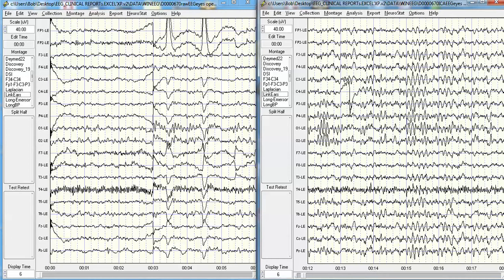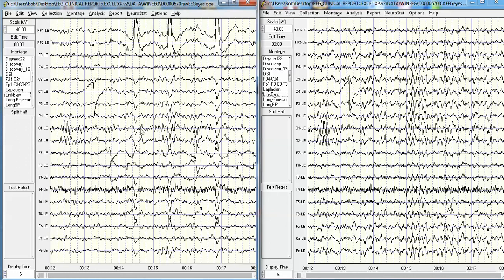You can see no eye movement in the reconstructed data. Here's that feature at 13 seconds that was present in the original data — it's not eye movement, so you can see it in both the original and reconstructed records. But the eye movement is missing — it's gone, removed by the independent components analysis reconstruction. So this is very nice to see: you can use essentially an almost automatic method, though you do have to subjectively select the artifact components you want to remove.